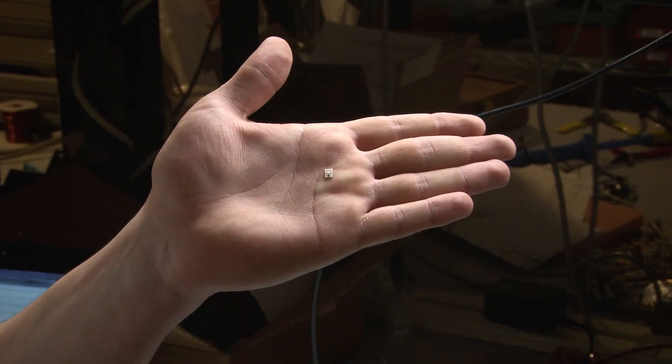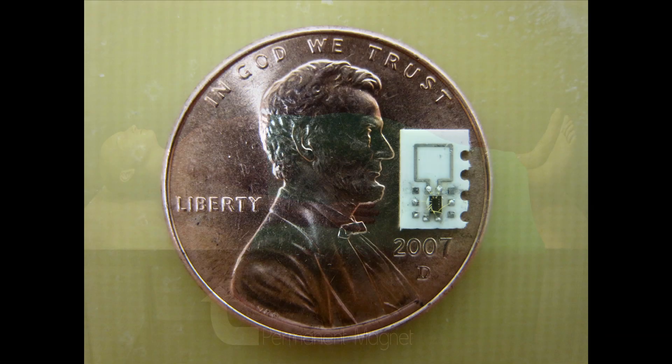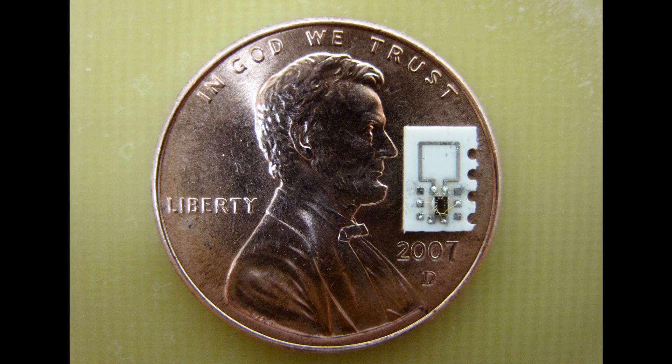Here we have the actual device, which is size 3 by 4 millimeters. The patient is placed in some sort of static magnetic field. In the animation, we depict this as a table. This allows the device to both be very small and also very power efficient.